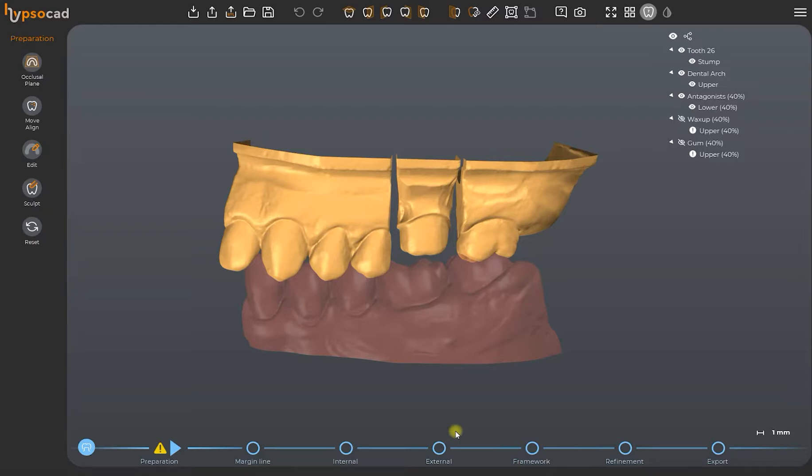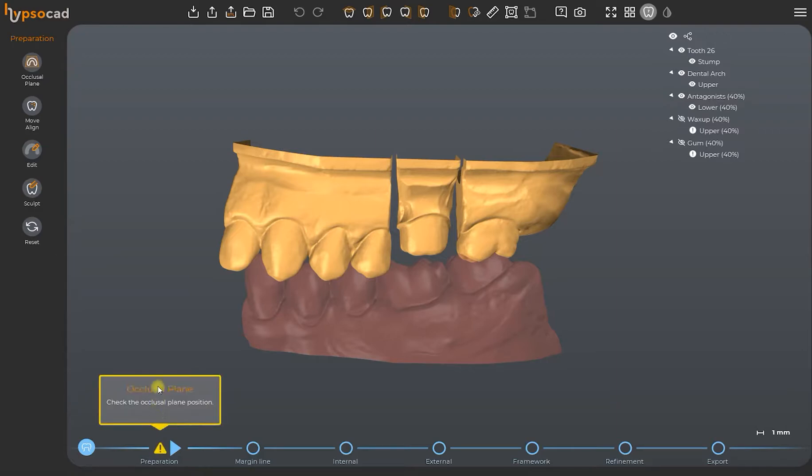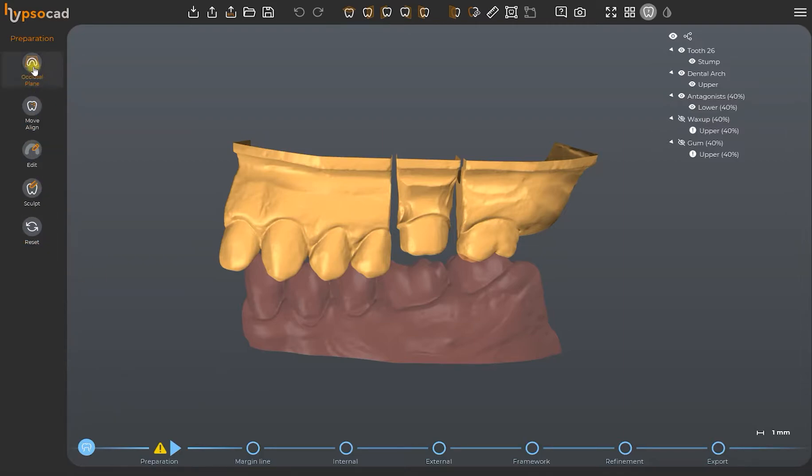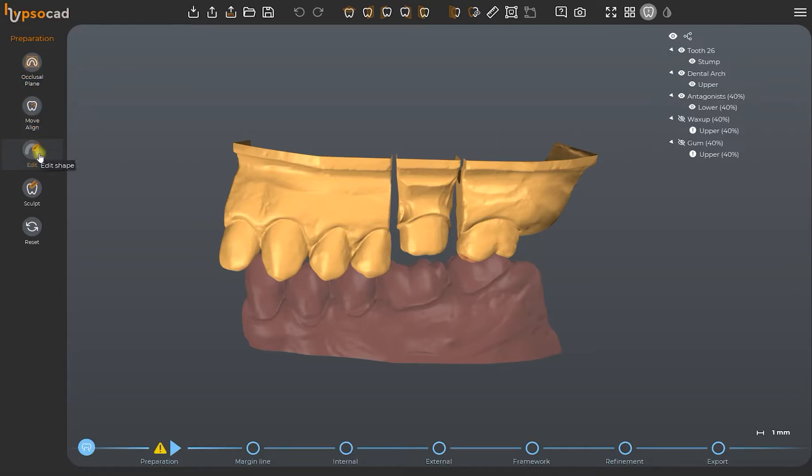The interactive bar shows the progress of your job and points out any possible warning in the construction process by giving suggestions or reporting any obstacles to the planning process. On the left, we find a series of tools that are to be used from the top down. Please keep in mind that not every tool must be used necessarily to finalize your job correctly.